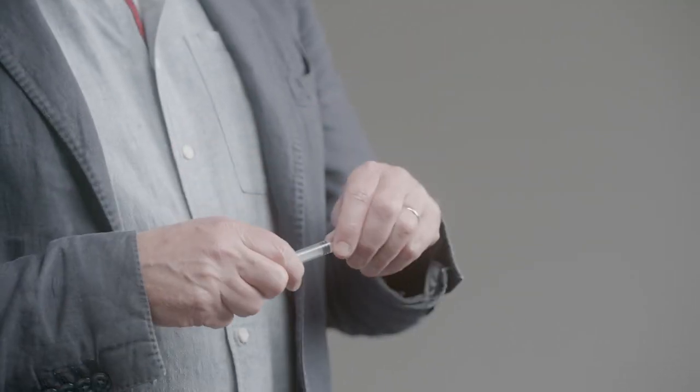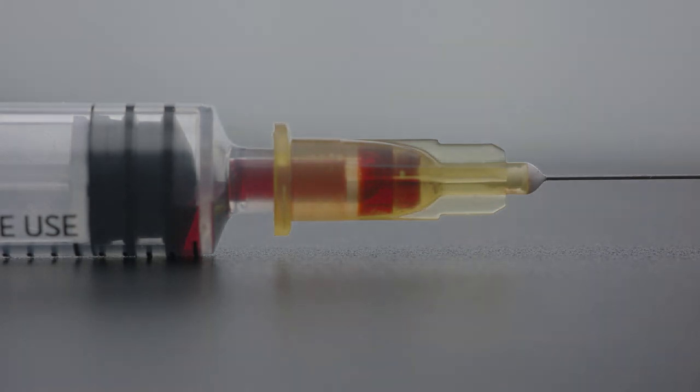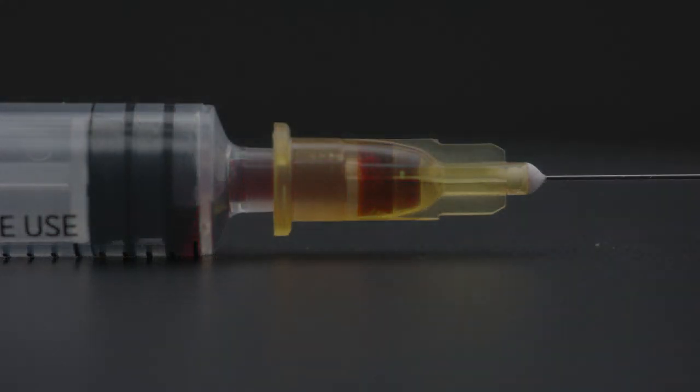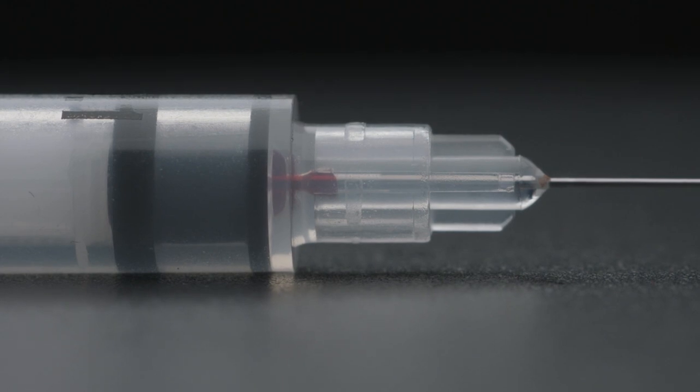We then realised that when you have a high dead space syringe, because there's more blood there's more virus in that blood and it survives for longer. So high dead space syringes represent a much greater risk of bloodborne virus transmission than low dead space syringes.